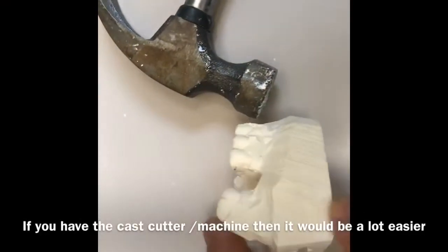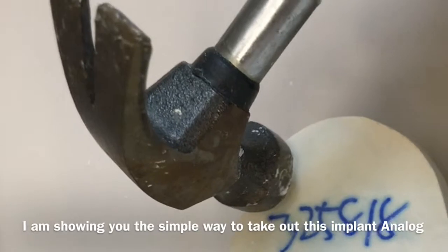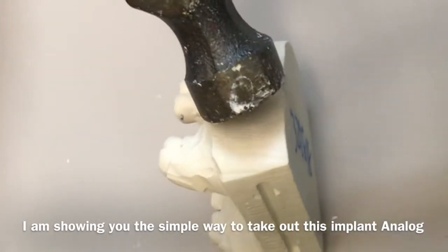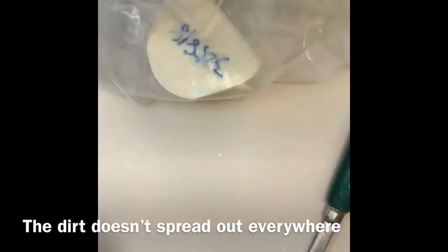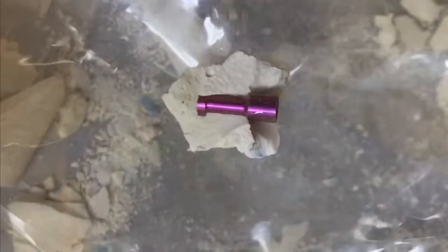Let's show you how to do it. With the hammer, break it right here, right here, and also right here. Here we go. Now you can see it come out like this, and you can just take it out this way.